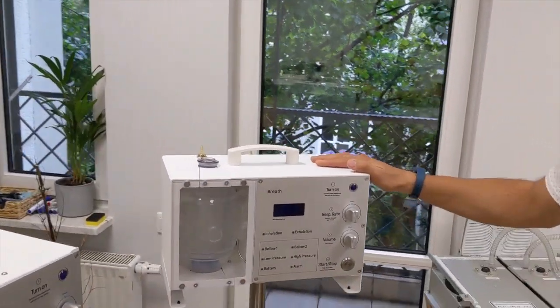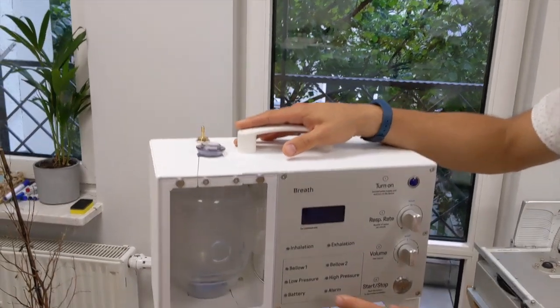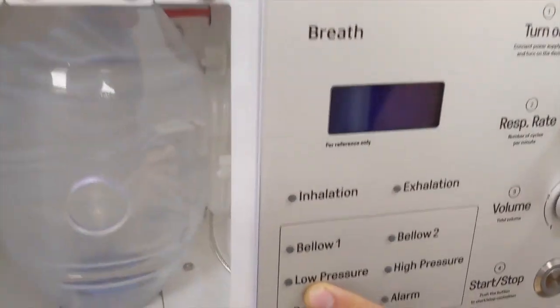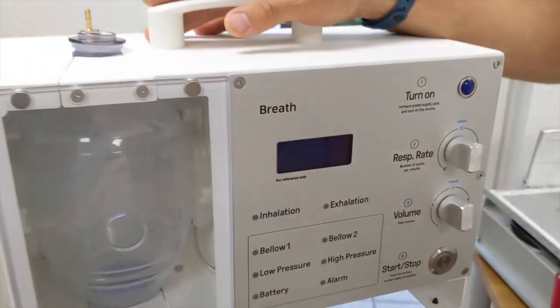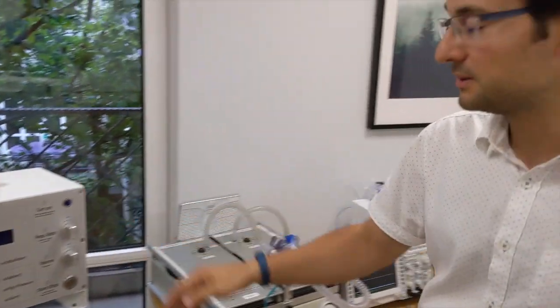And we have done the modification that we have added the monitoring of the patient. And we are measuring the low and the high pressure value for patient monitoring. Why? I'm going to show you quickly.